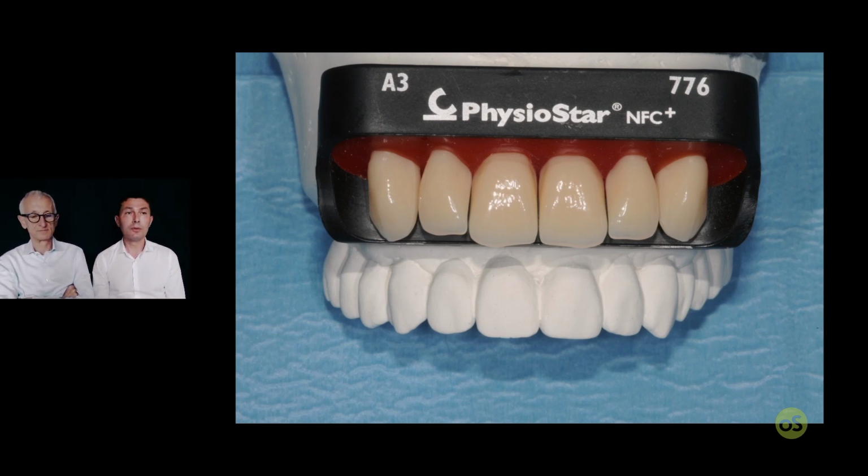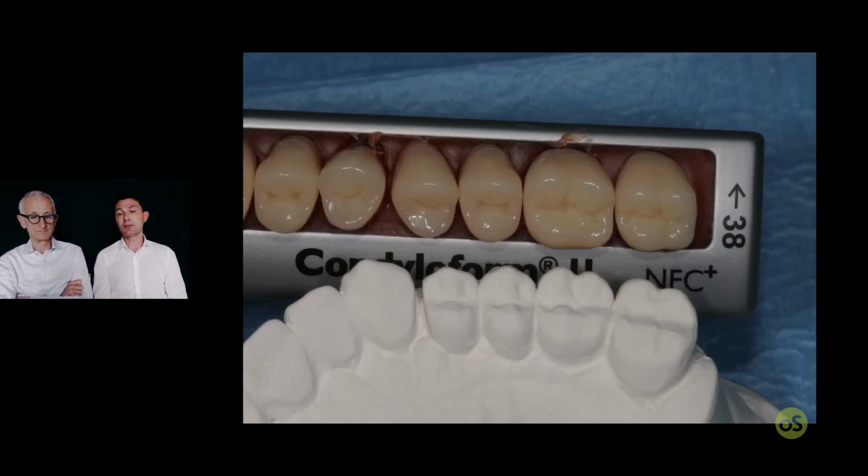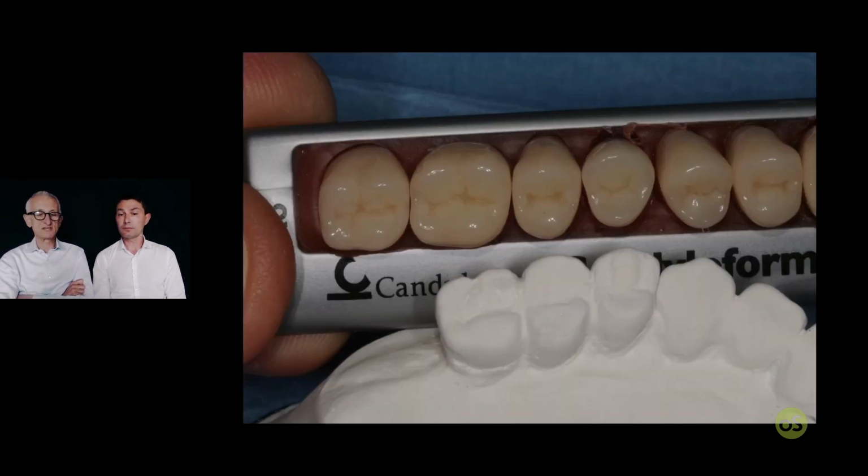And if you look in the mold chart, for sure you have the incisor and also the molar or the premolar with the same dimension of the existing situation. In this particular case, look, more or less is the same the incisor and also the posterior. So you just need to have some mold chart of some different companies to find which one fits best to the case that we are going to do.